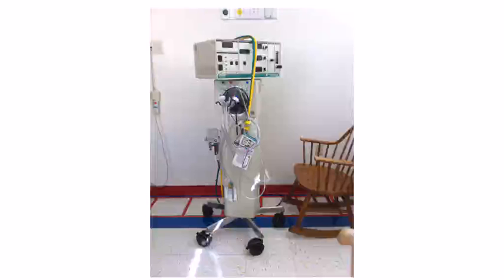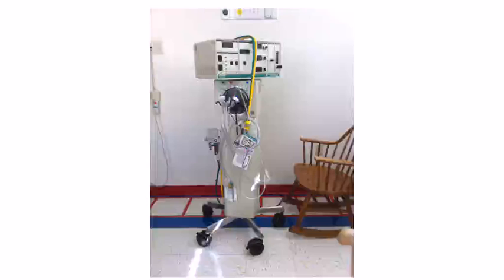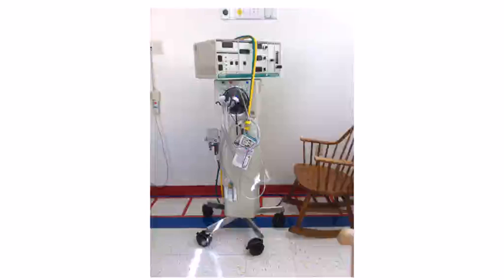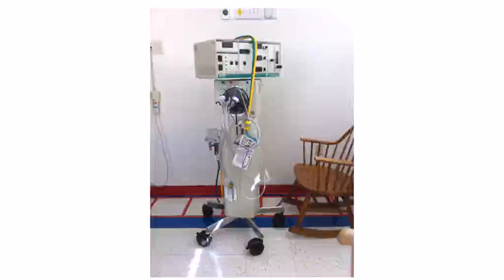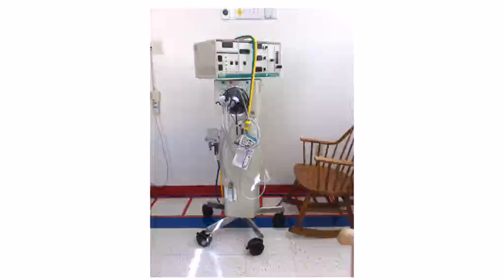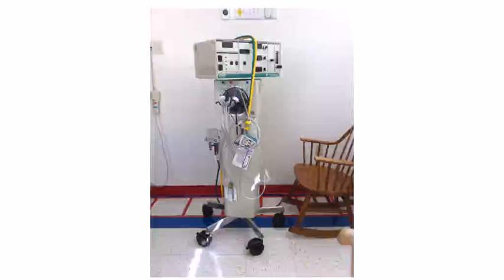Good day everyone, this is Chris back again with the Ancient Scholar and today I'm going to continue talking about high frequency oscillators. I'm going to start talking a little bit about a theory of how high frequency ventilation works, but before that I just want to go ahead and actually show you an oscillator in all of its glory.